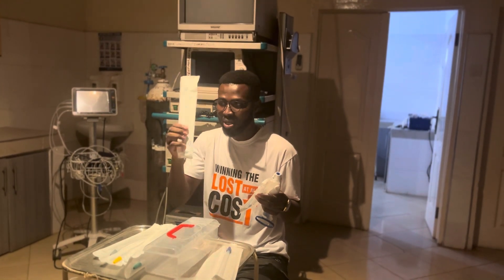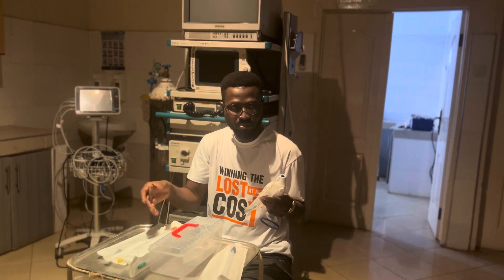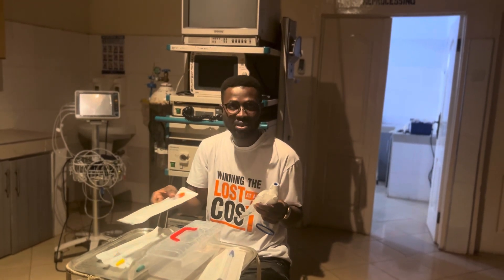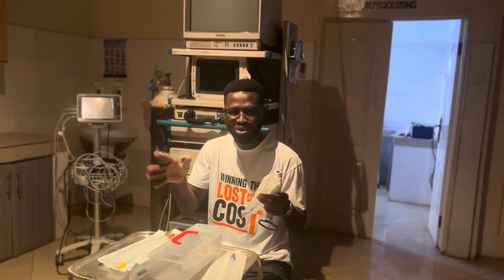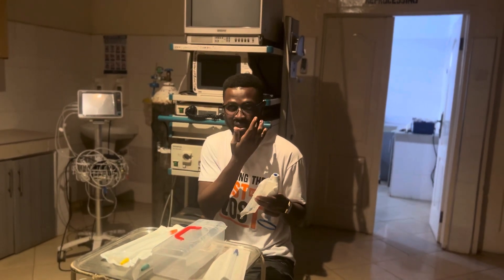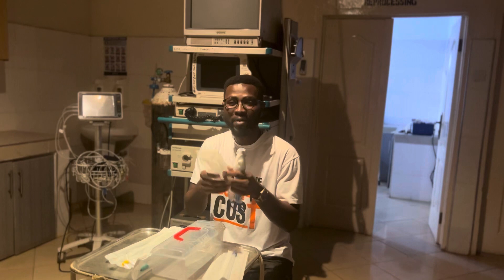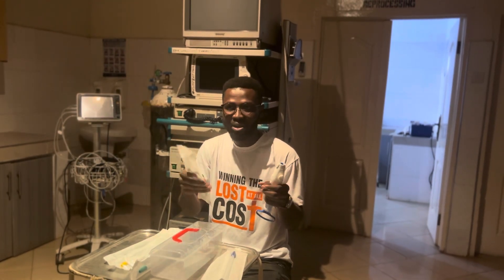So if the woman is four weeks, you use the four-week cannula. If the woman is 12 weeks — that is why MVA ends at 12 weeks for most of the literature. So the cannula size actually varies, and that is why they have different cannula sizes.